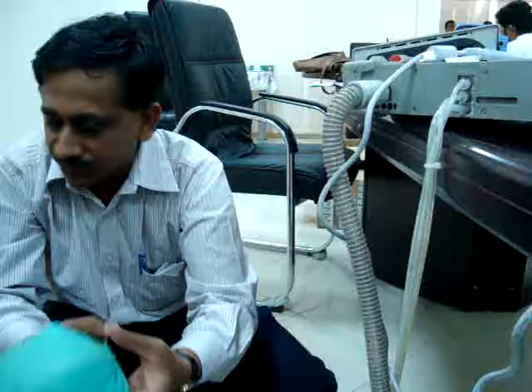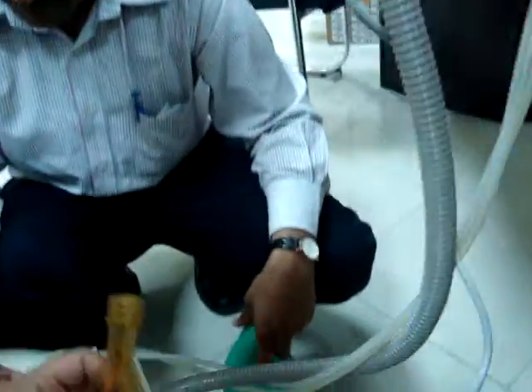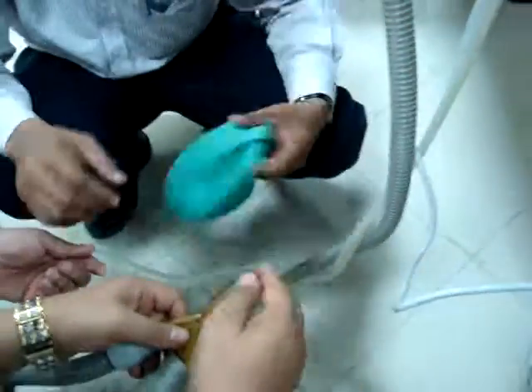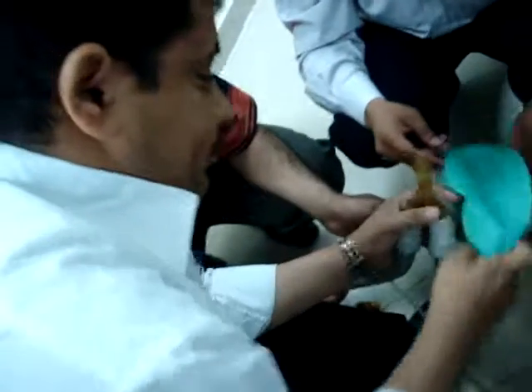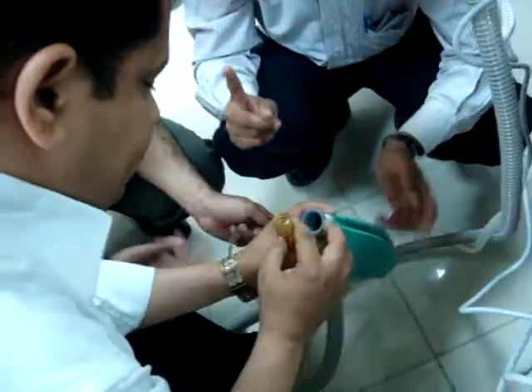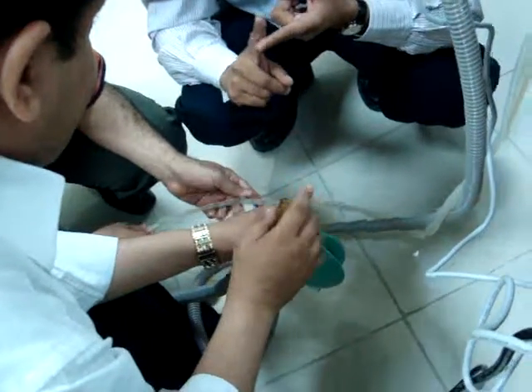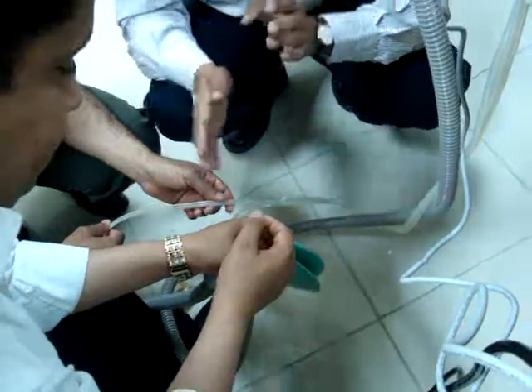Can I show you? No return air means no patient. That is feedback. It is not only feedback. With the feedback it will calculate how much breath to give for the next breath, the next minute. And second, tidal volume, minute volume, all the calculations come from that.